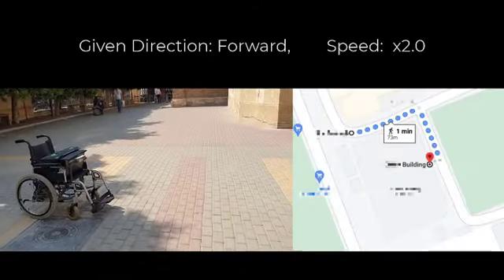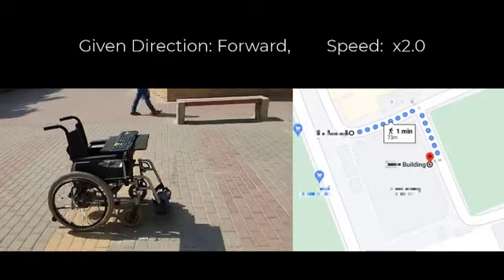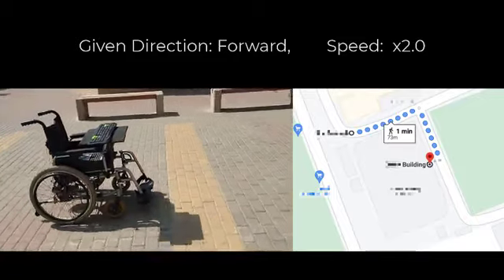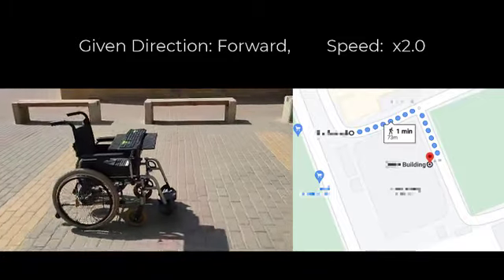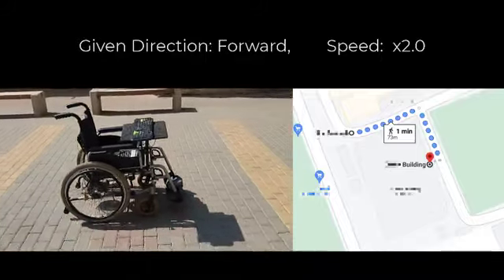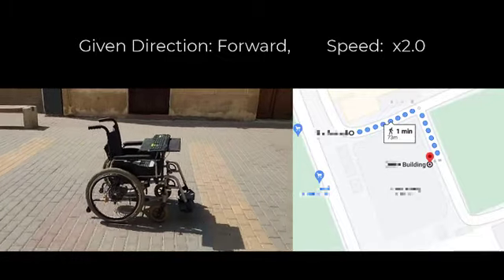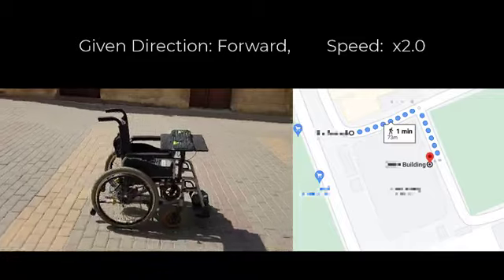This demo will show the autonomous mode of our project. The user first selects one of the predefined locations on the screen using the BCI GUI. The motion planning module then uses the GPS submodule to find the wheelchair's current location and then uses the GSM submodule to send a request to an online GPS navigation API that can return the high-level mission plan.